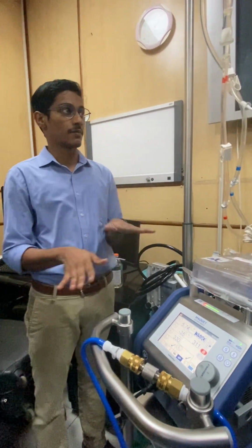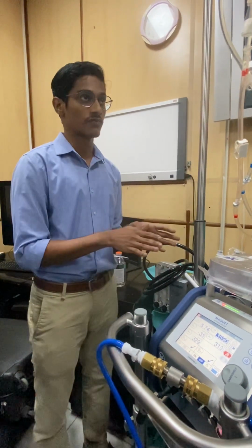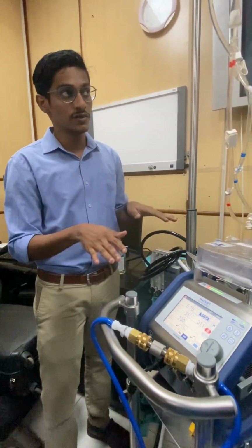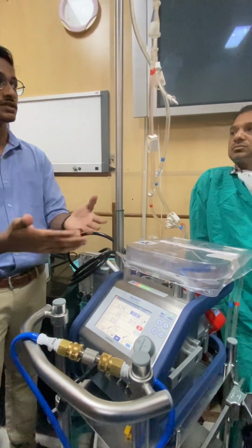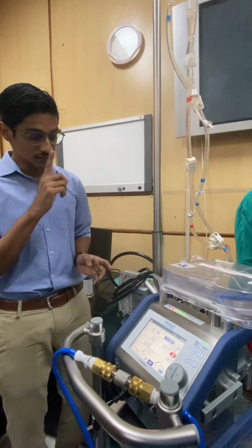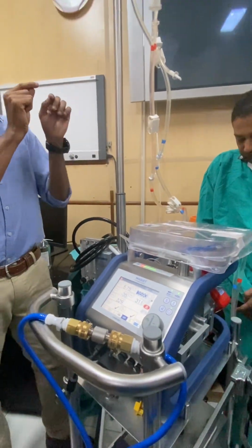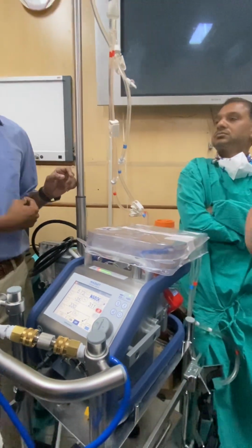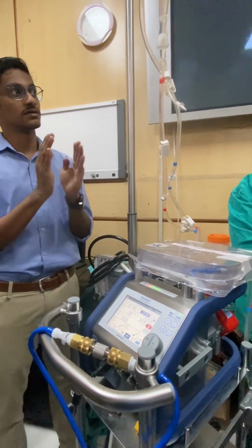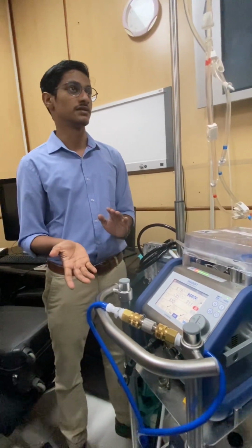So we don't want this to happen for something like a venous bubble. In such a situation, the machine will go to zero flow mode. Zero flow mode means the pump will be stopped and will not give any output into the patient. The bubble will remain in the same place, but it will prevent any backflow. That is where the importance of the direction of the flow sensor lies. As soon as the pump stops, if there is 100 ml backflow, the pump itself will generate 100 ml forward flow. It will make sure that the balance is there. So this prevents collapse of the patient in such scenarios.